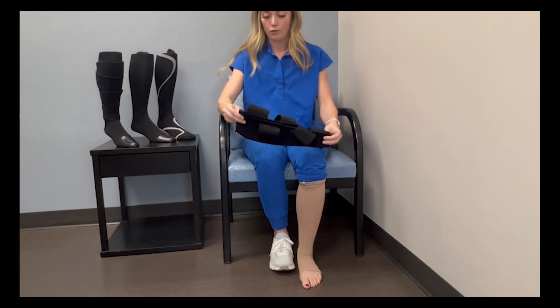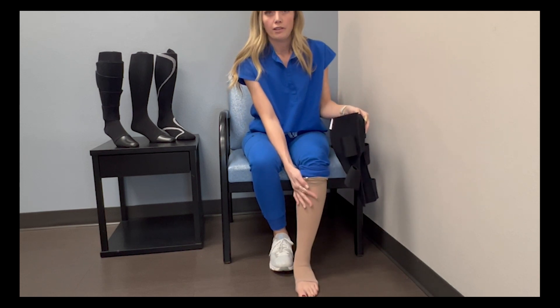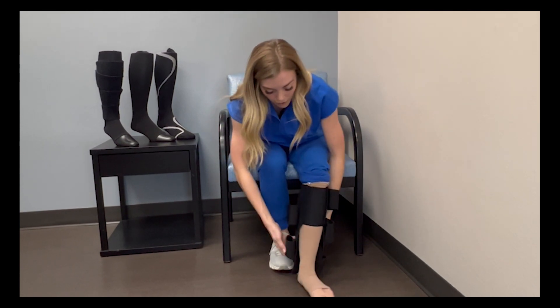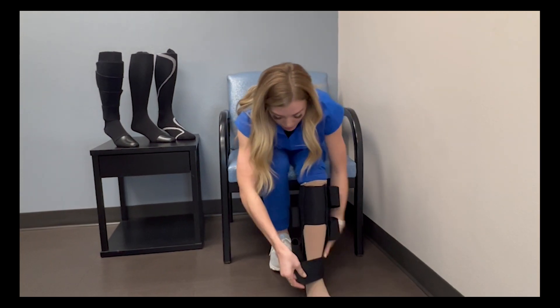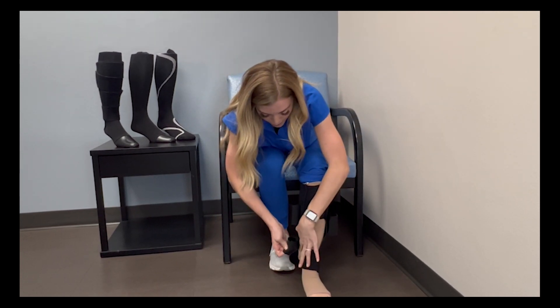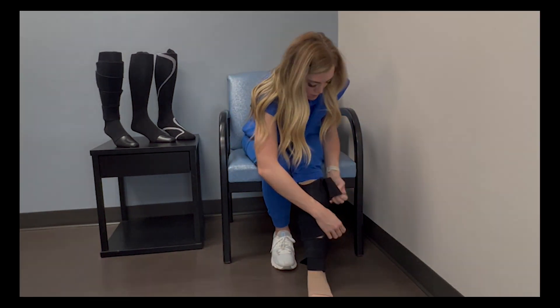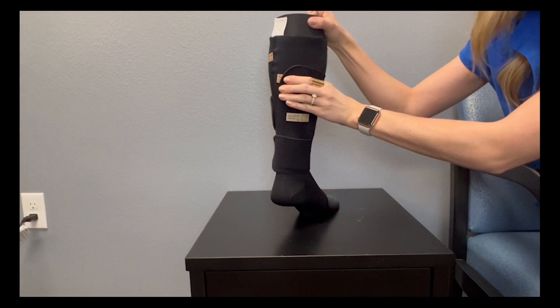So this is how we put on the compression Velcro. This is the back side where your calf will go and then this is about where your shin would be. They normally come with a liner sock that you will have to put on. I'm going to take the compression Velcro, slip my foot into it, and pull it up over my calf. I have my Velcro straps neatly rolled back, and I'm then going to unroll these and just lightly place them for now — there's no compression needed at this part. You will just take each strap and place them, and when you are putting it on you just loosely place it, which allows you to pull to your desired compression level.